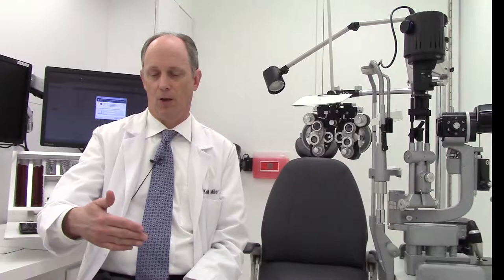For all these years, my favorite diamond knife for doing the relaxing incisions has been Doug Mastell's knives. And in particular, I like a special footplate design on the PHD device, the PHD handle. I like the footplate because when you run the footplate over your finger, it doesn't catch your finger, and therefore it's not going to catch the conjunctiva.